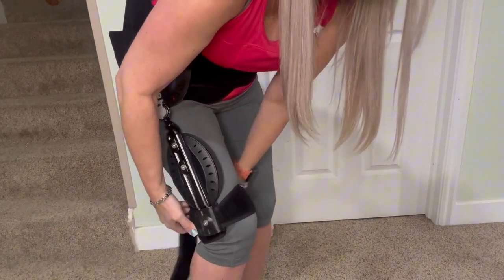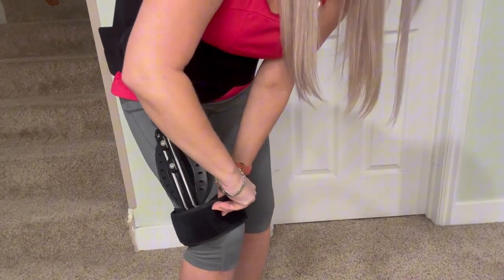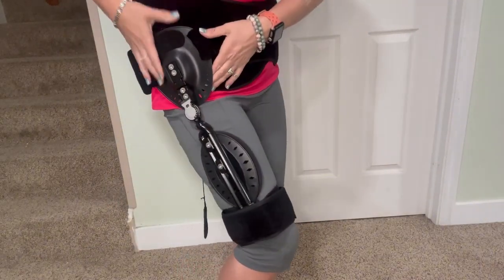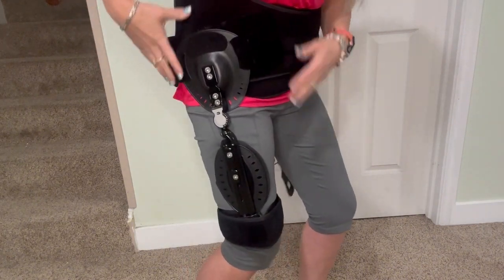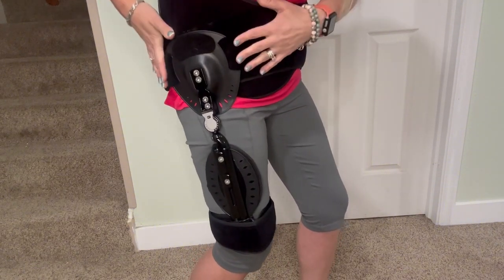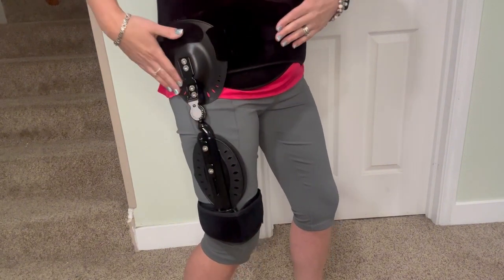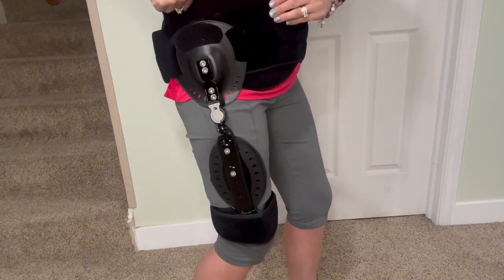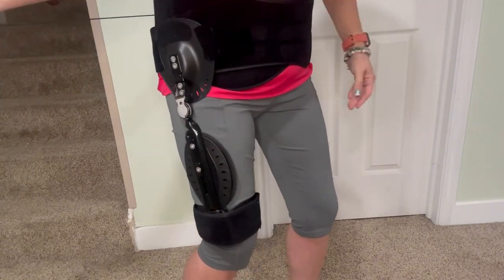You can adjust this any way you need to. It's very flexible, and because of the tool you can make any adjustments for the best flexibility. This is just how easy it is to put on and use on your own — you can see it goes from the hip down to the knee perfectly.